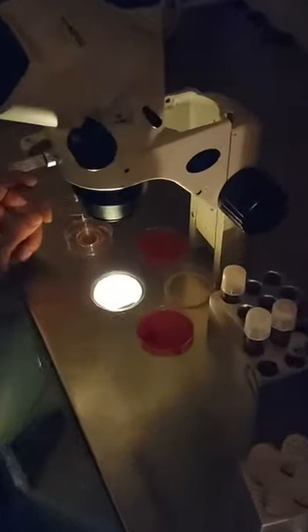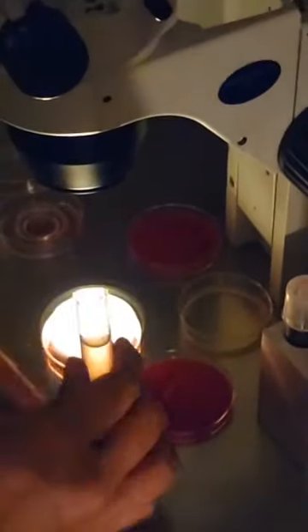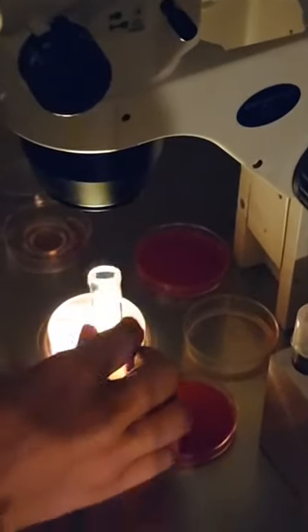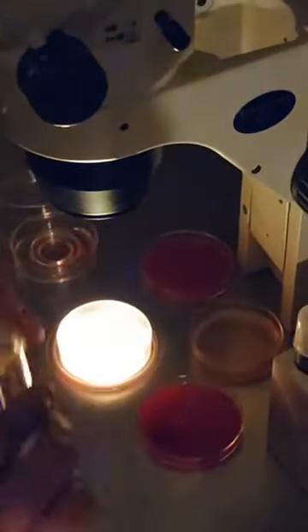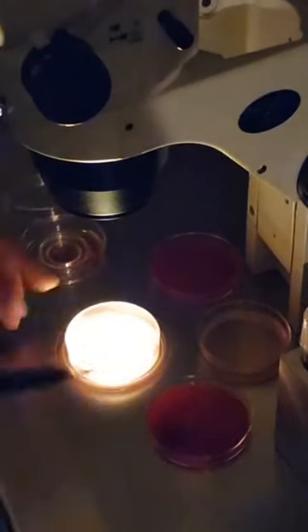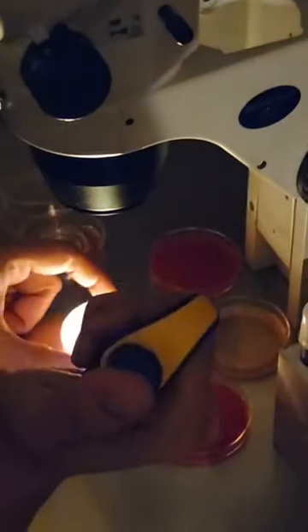There is an internet problem due to certain issues occurring. You can see this is the dish we are working with here, and this is the follicular fluid. I will be showing all of you the OCC complex as well.